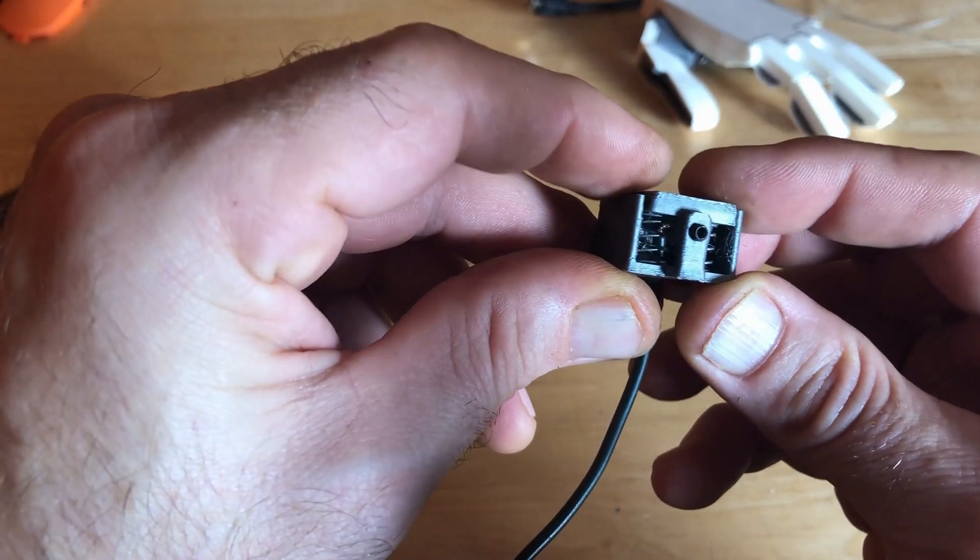There are two springs inside here. So that would turn it one way, push the button on the other side, turn it the other way, take your finger off and it just stops. Unfortunately the spring was too powerful, so Sol had to push really hard on it. That would mean he's moving his arm around, and what you want is quite light operation.